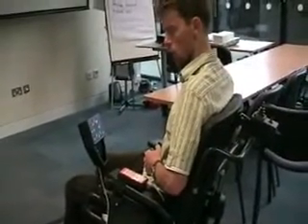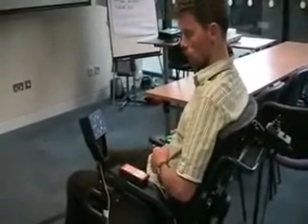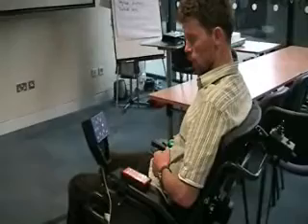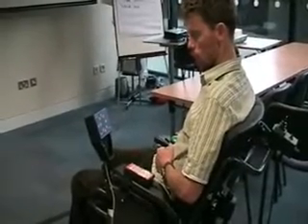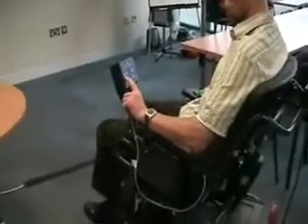And just to bring that back again. To exit from the chair actuators, I have to wait until the scan comes back here again. And now I am back into the chair drive mode.